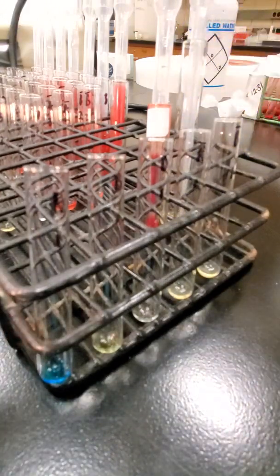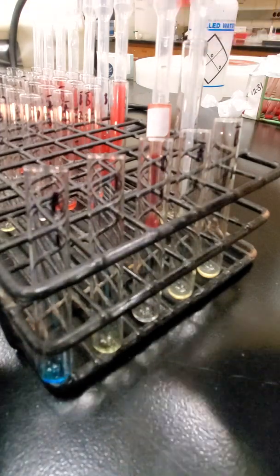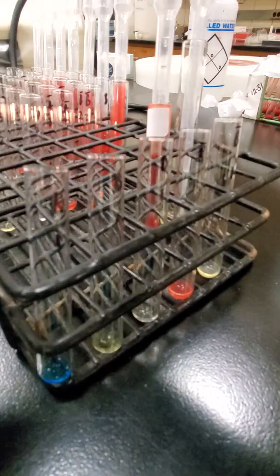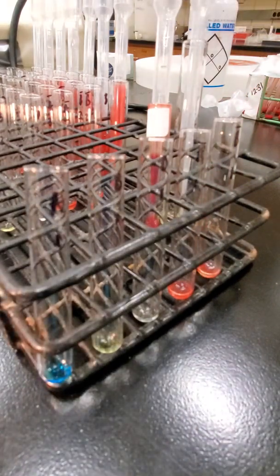Okay, and I can actually add my reagent red cells, my A cells to my A reverse tube, just 1 drop. And then my B cells to my reverse B tube, just 1 drop. Okay, and I think my cell suspension is almost done. And actually, you know what? I'm going to pause the video because I forgot something.